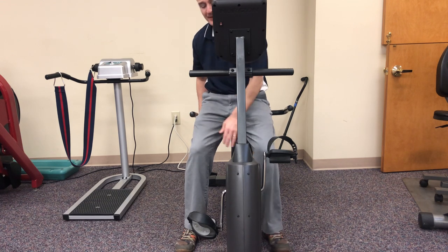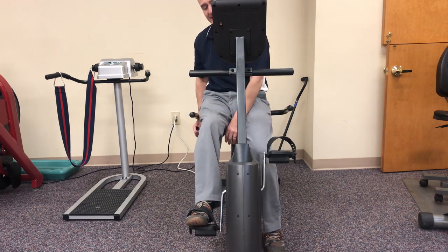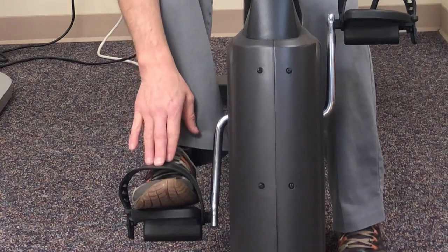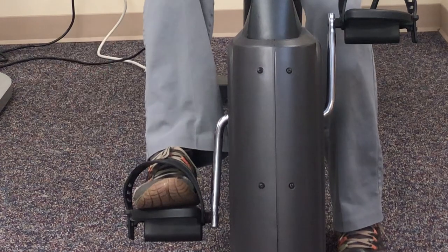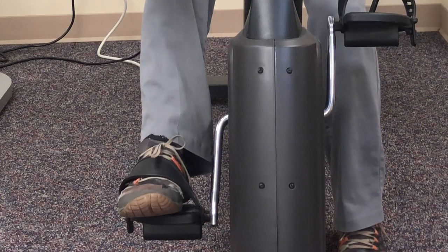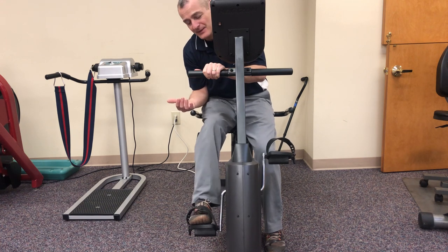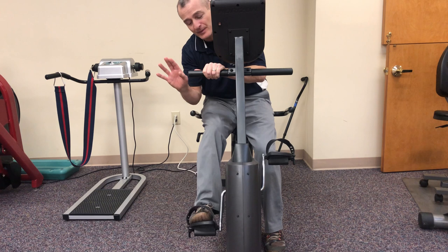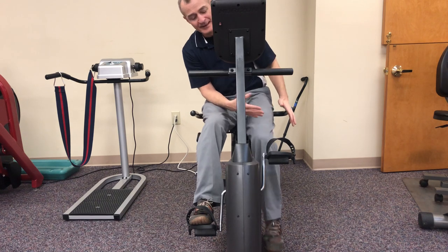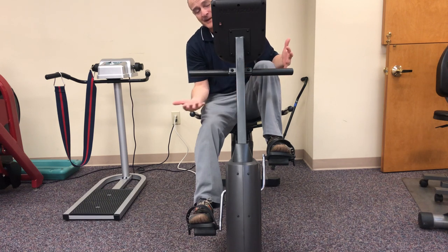I get my foot in — if I'm using the straps I just slide it in like that. Ideally, the pedal placement is going to be the ball of your foot in the center of the pedal. Too often I see patients slide their foot all the way forward. We want to slide that foot back so that I have ankle mobility, I can do my ankle pumps, and I can feel the pedal right at the ball of the foot. Then I'll put my other leg on the high pedal, because that leg did not have surgery so it's easy to maneuver and control.